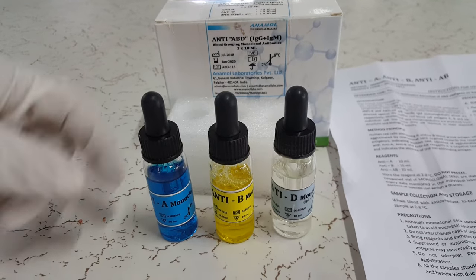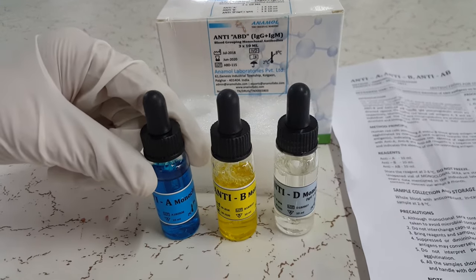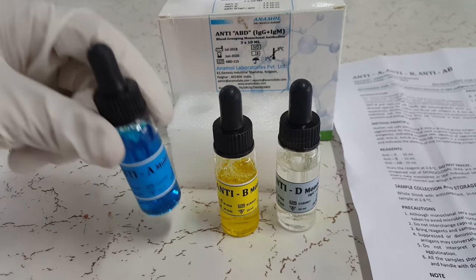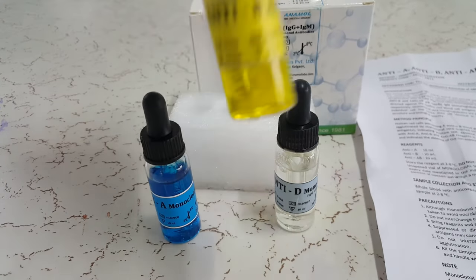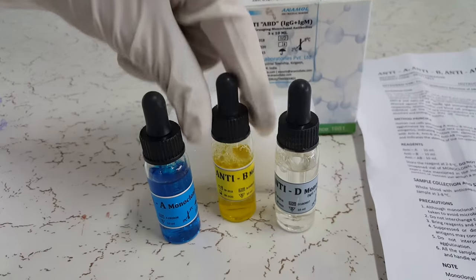First let's have a look at the kit components. The kit contains monoclonal antibodies for A, B as well as D antigens.